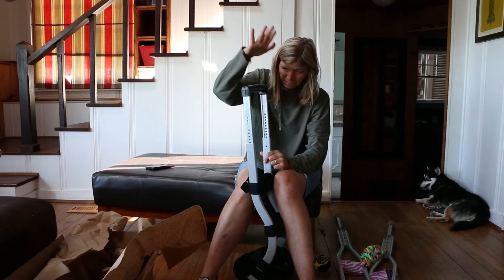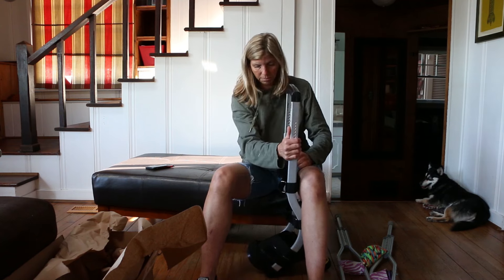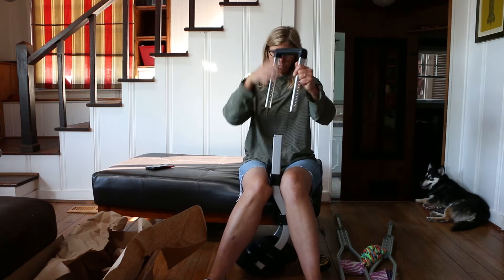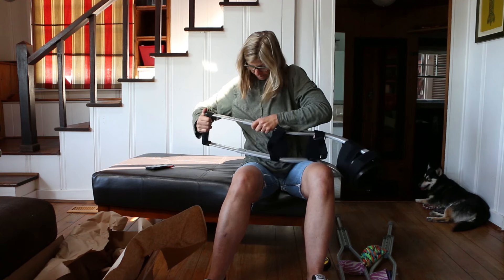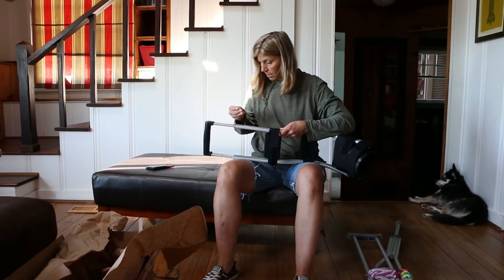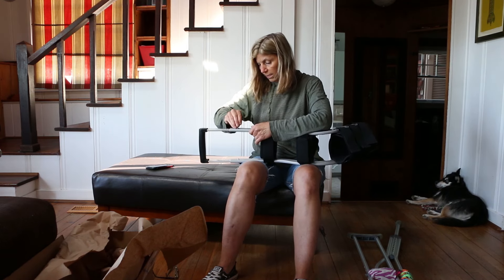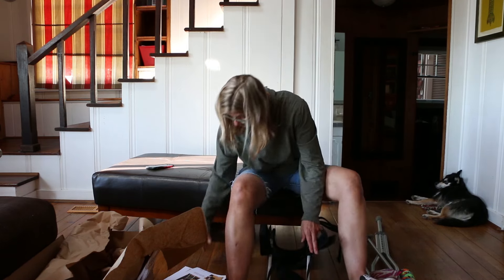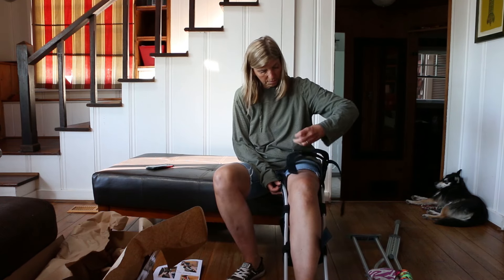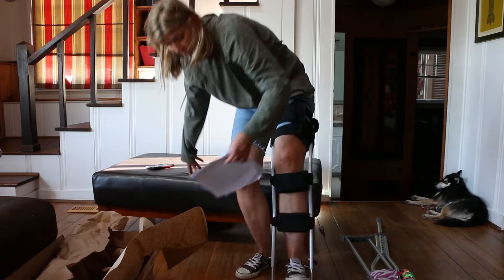If your wrists hurt, just slide it — am I missing something here? Shouldn't matter, right? Okay, that looks... I guess you just push these back in and hopefully they lock. That would be super easy. Now what? Okay, now where is this supposed to go? I think I'm doing something wrong.